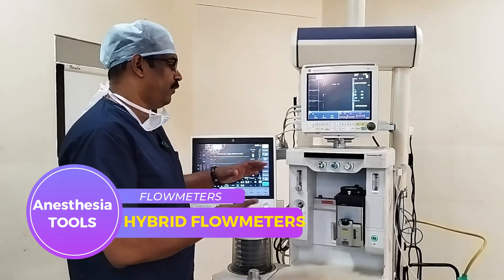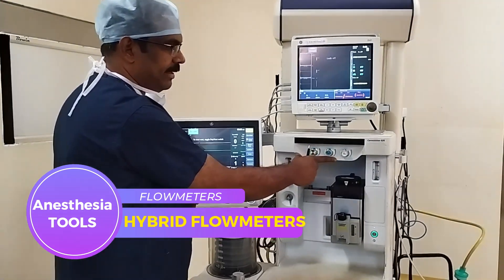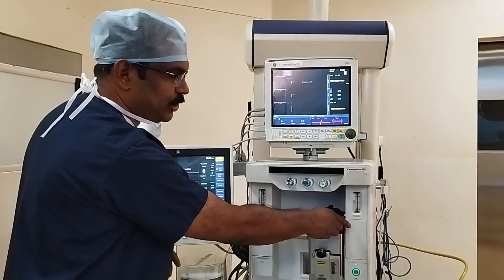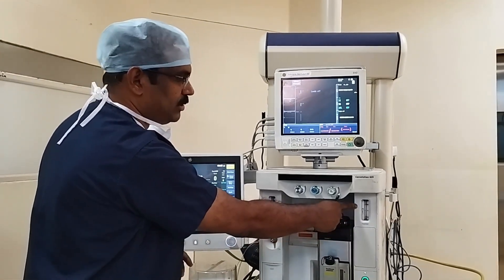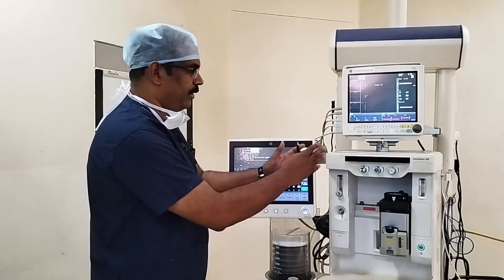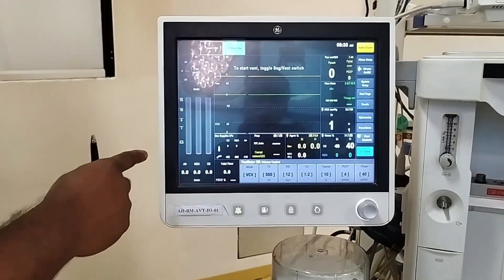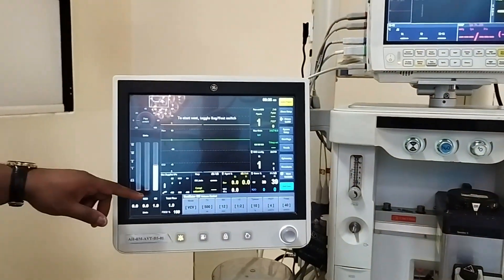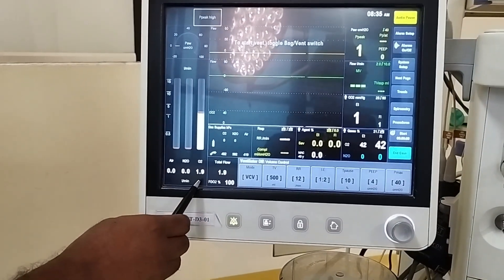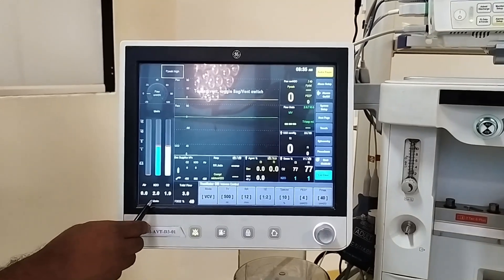This is an example of a hybrid flow meter. Here we can see the flow meter control knobs for oxygen, nitrous oxide, and air, but there are no separate flow meter tubes for each gas. We can see a conventional flow meter indicating the total flow, and the mixing parameters are set by separately adjusting oxygen and either air or nitrous oxide. For user-friendliness, the flows are also shown as an electronically graphically displayed flow meter. As I increase the oxygen, you can see the graphical bobbin going up, with flow values in liters per minute indicated. Once I open nitrous oxide, that is also indicated in liters per minute.